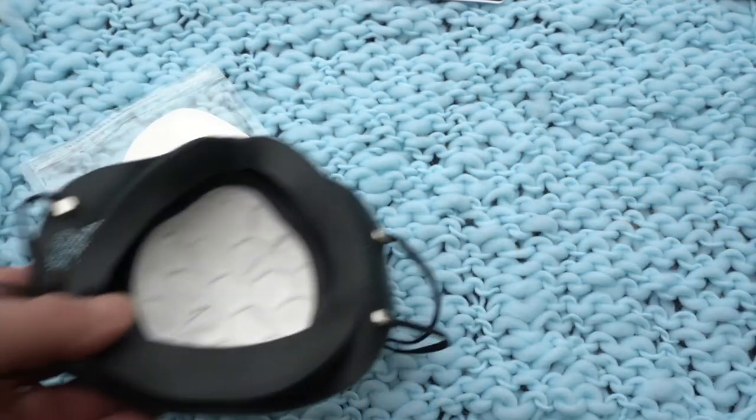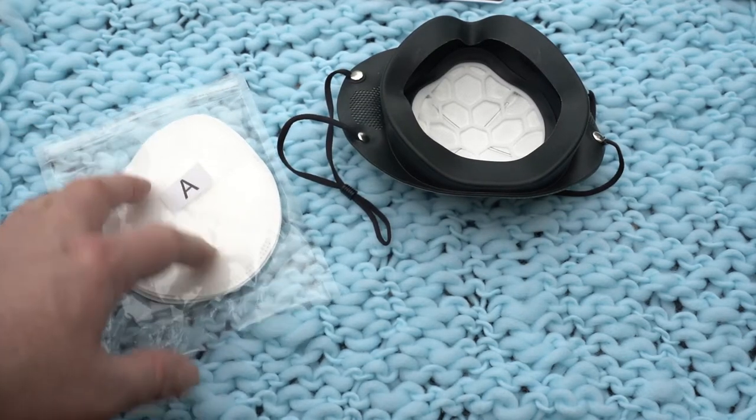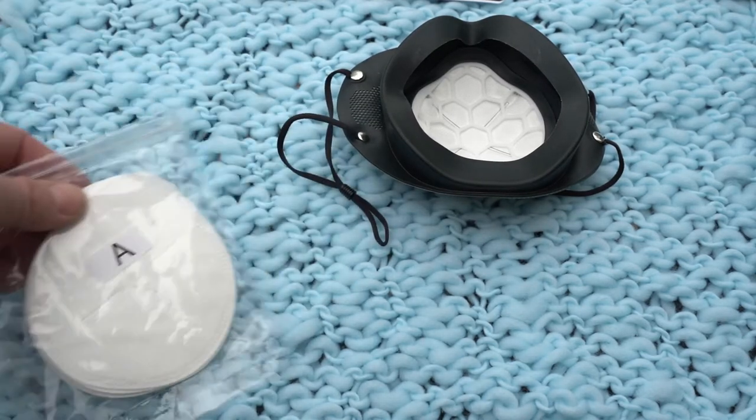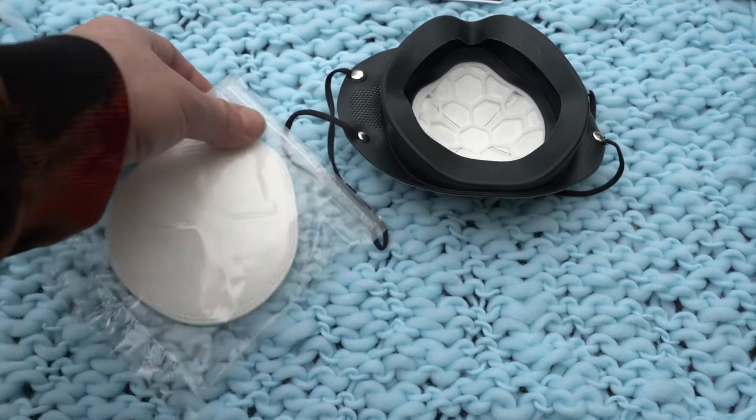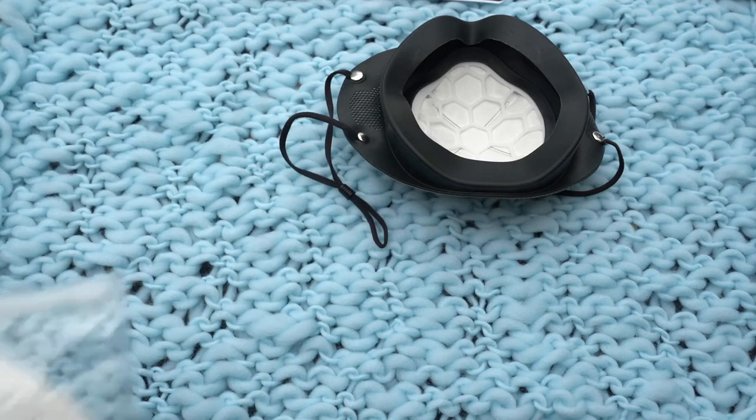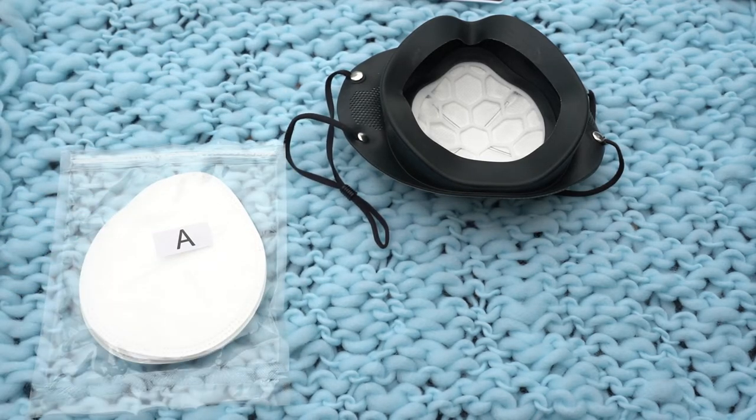When you order, I recommend you get more filters. I mean, this is for the pandemic but also for smoke when there's wildfires, when you're doing construction, concrete, etc. These will be good to use for all those circumstances.